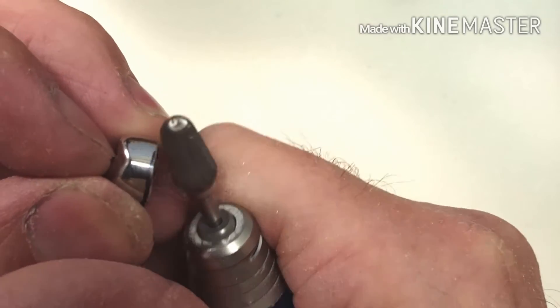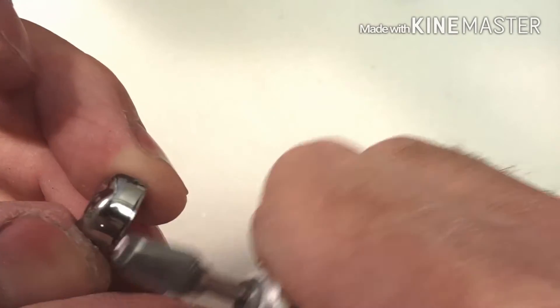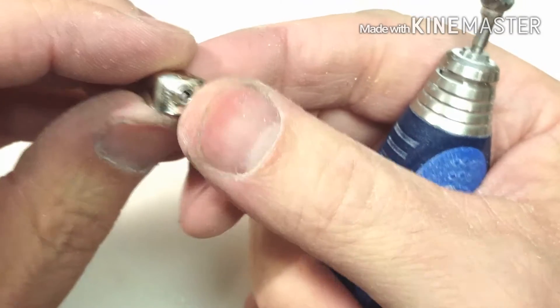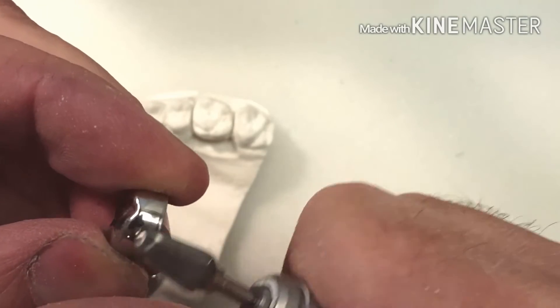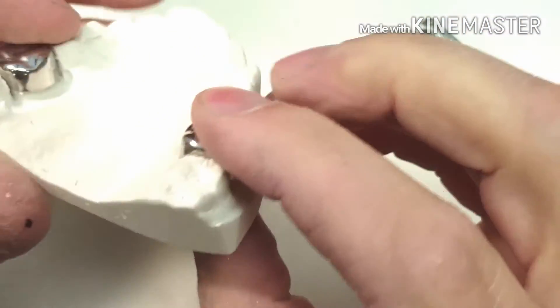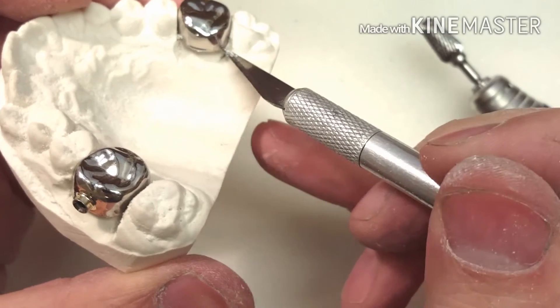I'm going to do this really fast. On this side you really don't have to do much because the length is about where they want it anyway, but you can definitely see that I am contouring the tooth to make it shorter. And to answer anybody's question — yes, this is extremely hot. You can see the distance on this side is much longer right here, and that's the impingement part. By taking this off, the impingement part is gone.